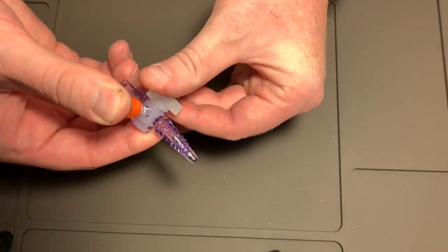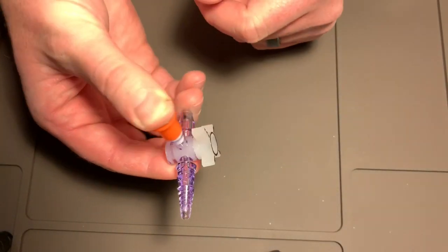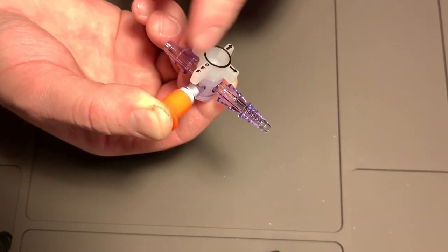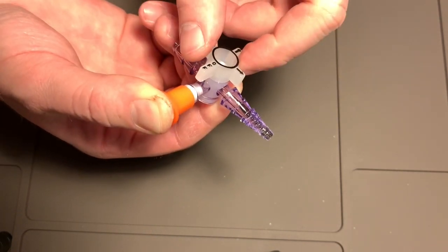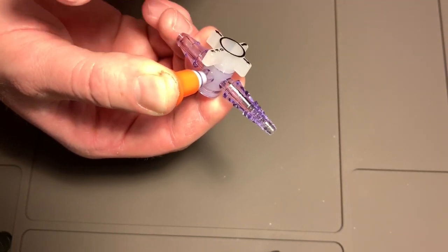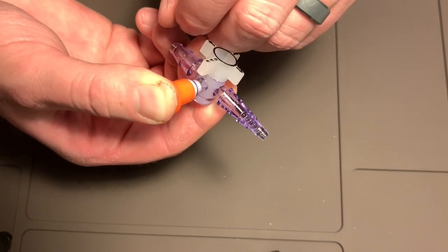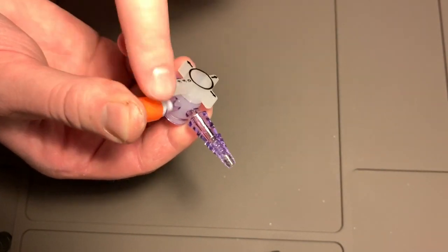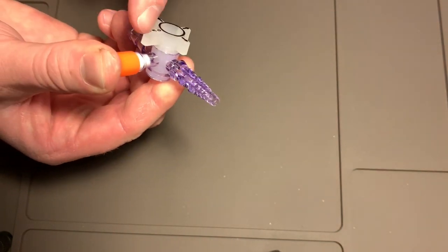Whenever you put this on there, your cap is pressurized. So what you do is once you have that, the long end's going to your patient, and it's off right now. So once you would finish, whenever you would then put your cap on after you're done giving your medication, you would flip it off and then put the cap on. Well, after you put the cap on, now that's pressurized. So watch what happens.